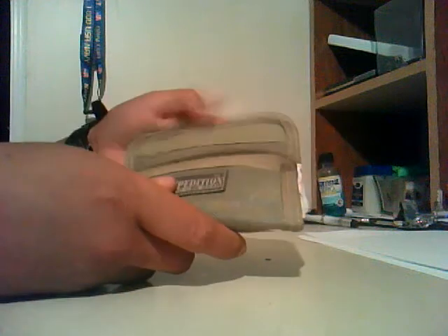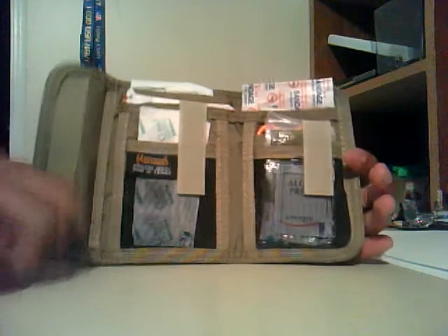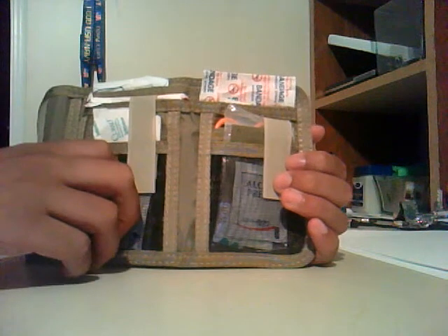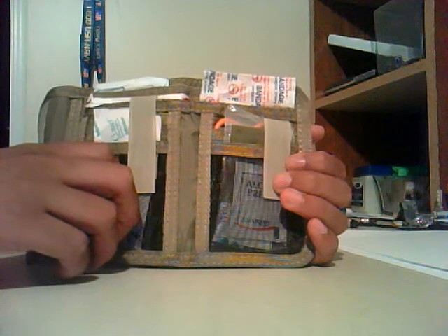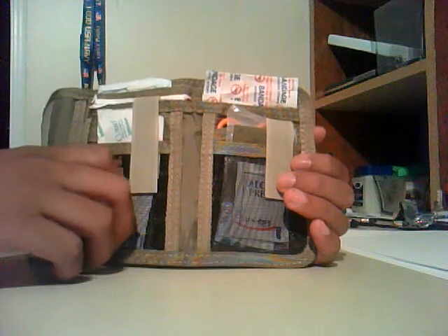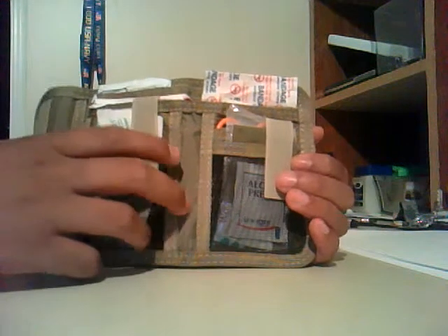Alright, now I'm going to go over the stuff on the inside. It is held by Velcro hook and loop field, and it is sort of a tri-fold, it's more of a 2.5 fold, because it's got the two-fold and then it's got a half flap here. So here is my setup of first aid equipment on a daily basis. This does ride in my cargo pocket, left cargo pocket every time. And if I'm wearing jeans in my left back pocket every time, it does not change, does not leave my left side because I can get to it quick. And plus my right side is full of other gear.